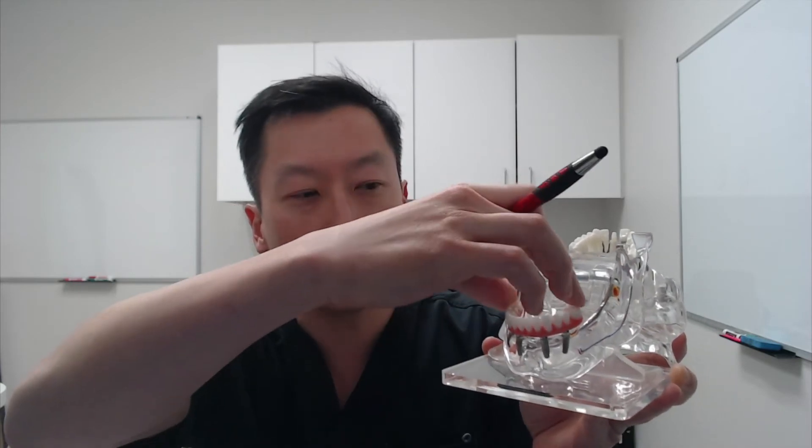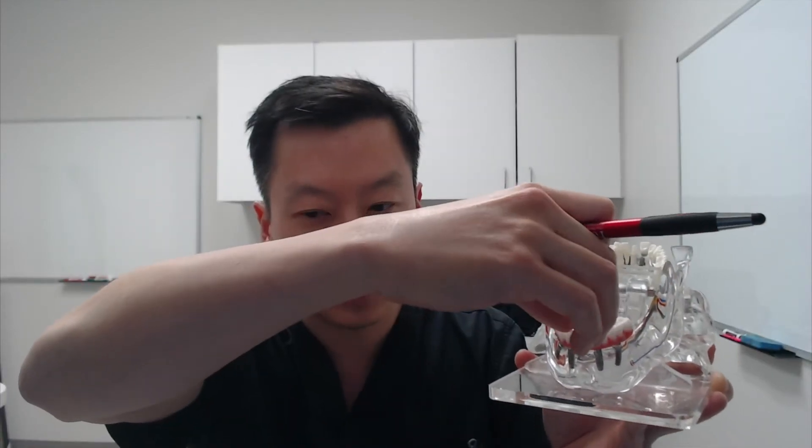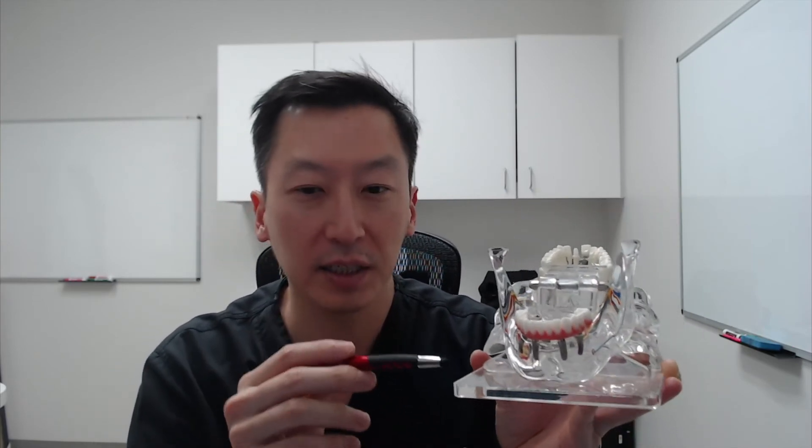What we're then able to do is put this one single-unit prosthesis and screw it into those dental implants. I like to tell patients these dental implants are the foundation upon which this prosthesis — this artificial piece replicating your teeth and gums — is screwed in. This is not removable like dentures; it has to be specifically removed by your dentist or dental surgeon. You can see the four access holes where we put tiny prosthetic screws into the dental implants. Dental implants are used here for an all-on-four prosthesis.